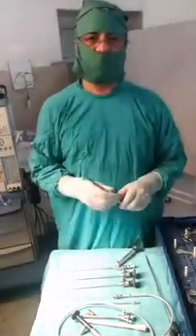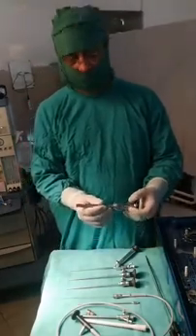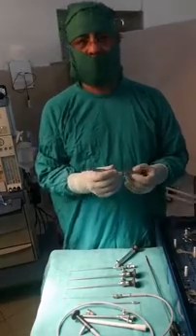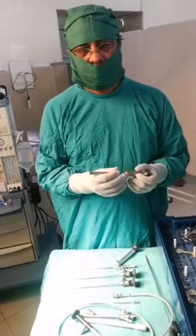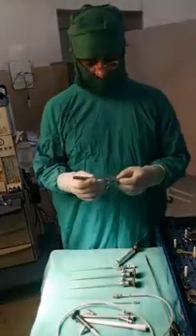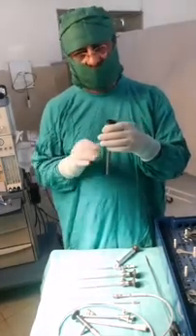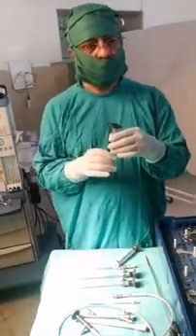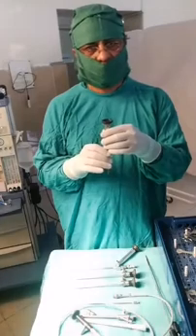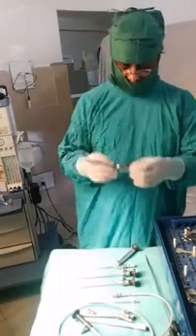We have the largest endoscope, also called an exoscope. It's 8mm in size — a big one. It's used for brain and spinal surgery. It's equivalent to a microscope, and you place it 15 centimeters above the operative field. Departments that cannot afford a microscope can have the exoscope instead.